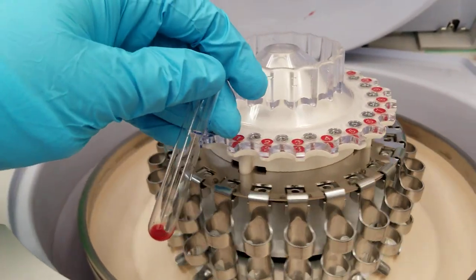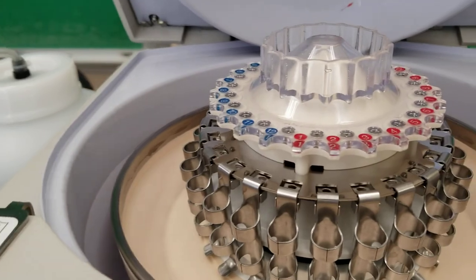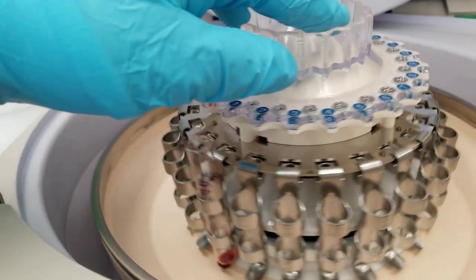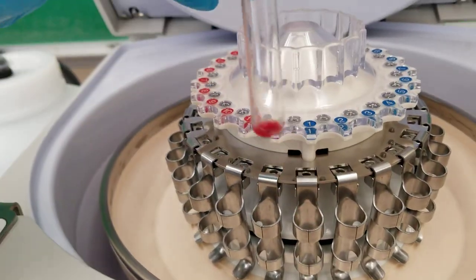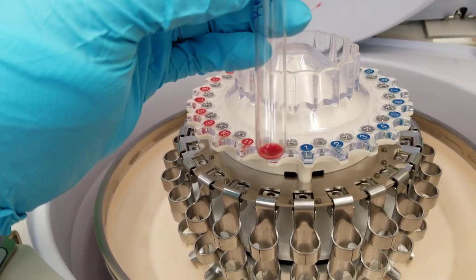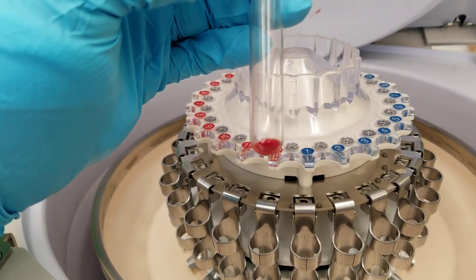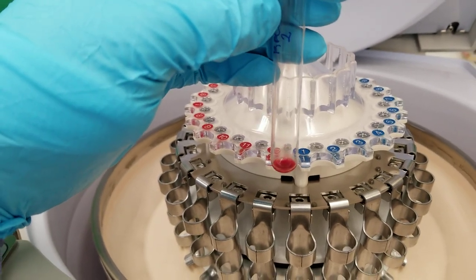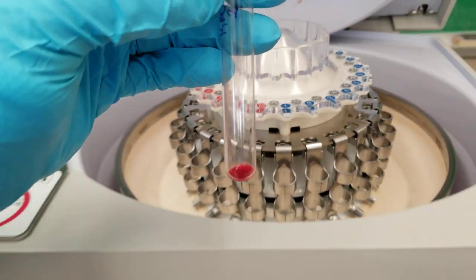And let's look at the other one. So same thing here. Okay. And again, these are more red cells than you would actually use in the tube testing that we were doing, but that's pretty much it.